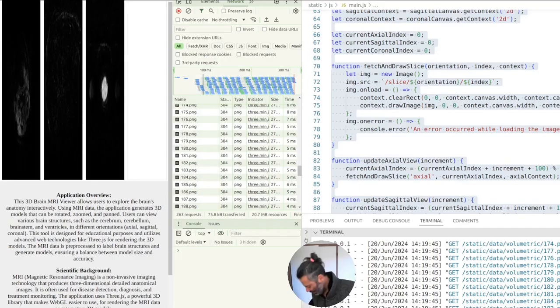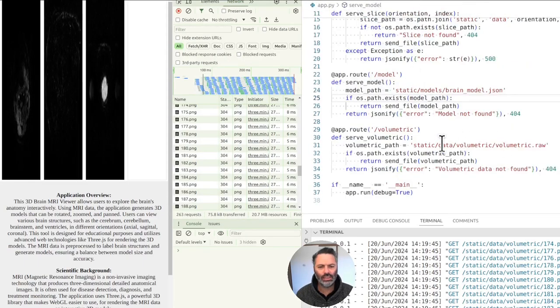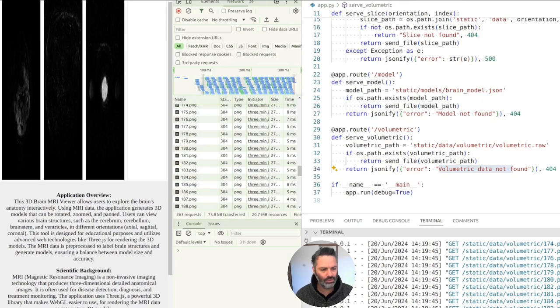It's not lazy — you actually need to tell it exactly where to look. The raw file is not being served in the Flask application and is not being loaded in the JavaScript code. So it can load individual slice images correctly but it's not loading the raw volumetric data. If you want to load the raw volumetric data you would need to make HTTP requests.